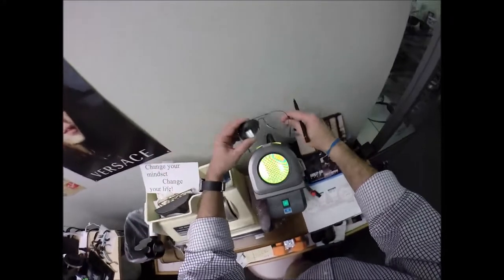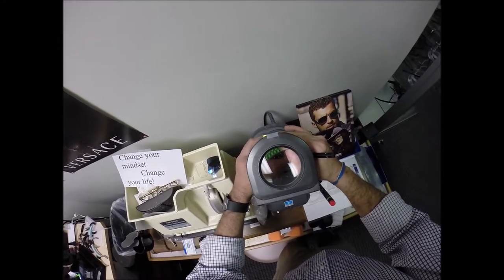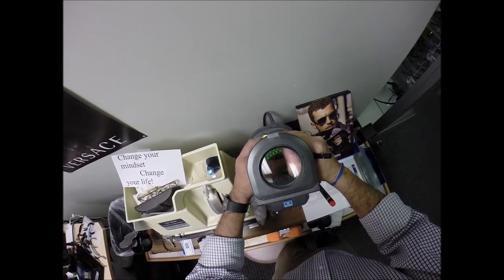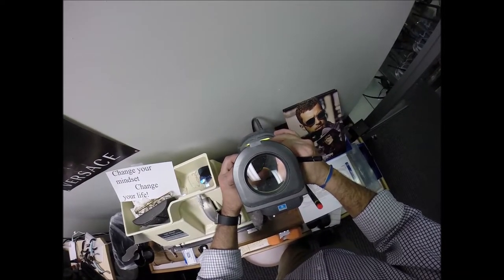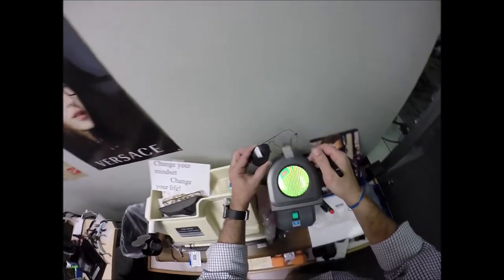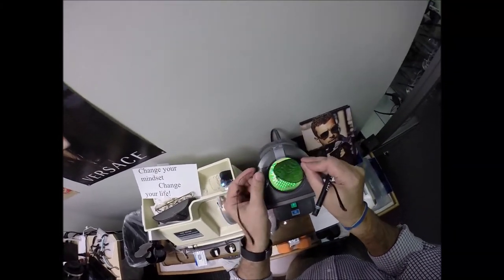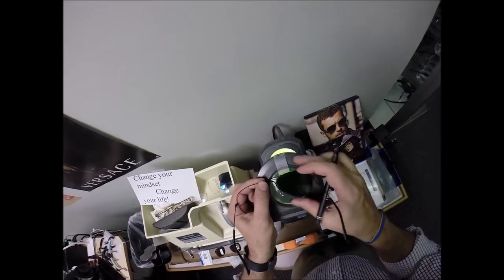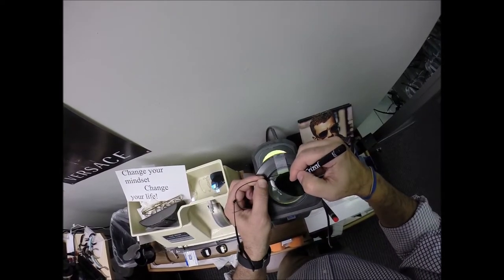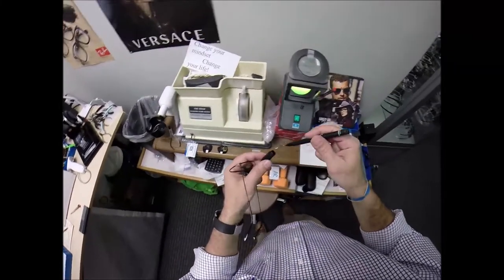Grab my pen. I don't know what I'd do with my second pen. Turn this on. All invisible bifocals have a little laser engraving. And they are 34 millimeters apart. And that one is just right there. I have this little layout here with the same two dots. Put that on there. I laid out in there, right? Am I boring, you guys?